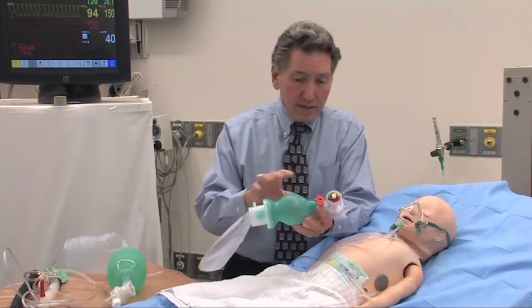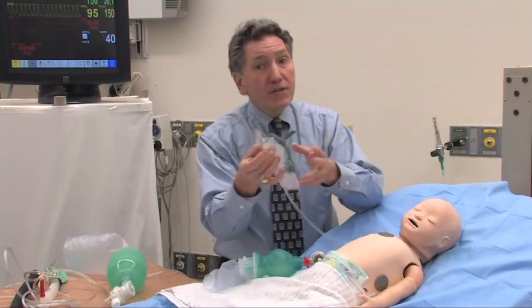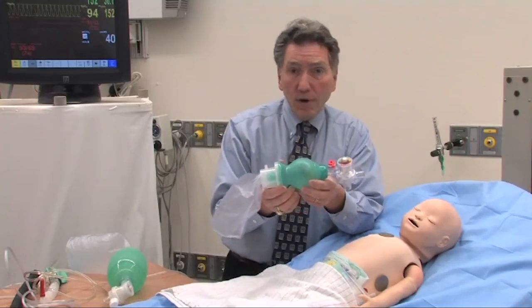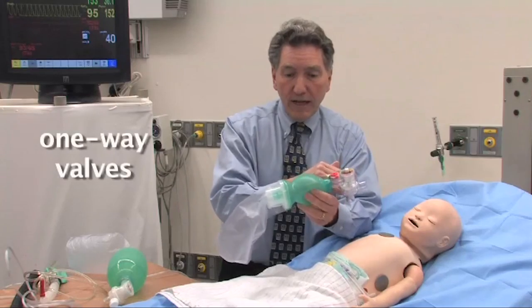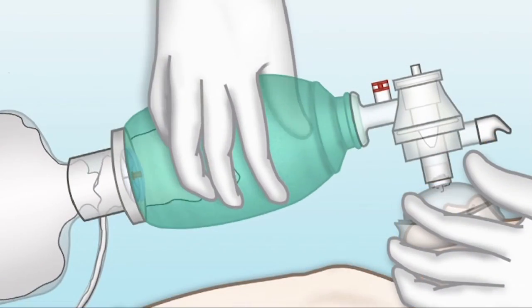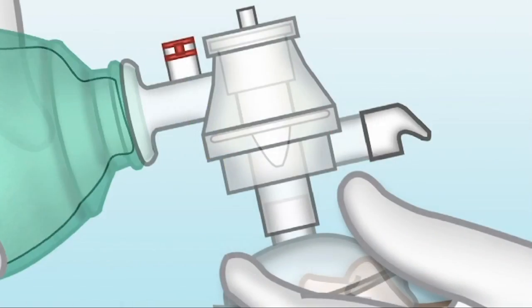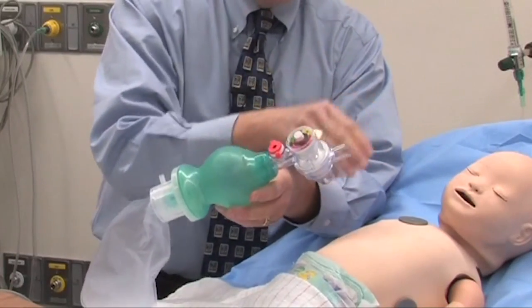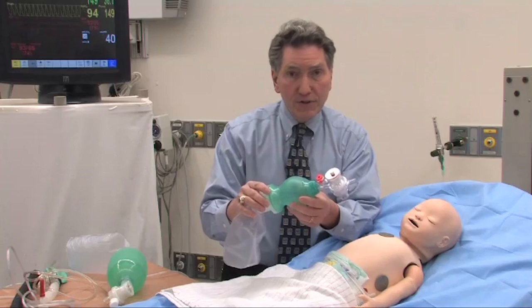How does it work? It's a relatively straightforward design, very similar to the non-rebreather mask in that it has valves and a reservoir bag. It's the quality of the rubber or plastic that makes it self-inflate. There are one-way valves: when I let go, this valve opens and gas comes into the bag; when I squeeze, this valve closes, this valve opens and the gas goes to the baby; when the baby breathes out, it goes into the room. So it's one-way flow — bag to child, child to room — with no CO2 rebreathing. A major advantage is that you can ventilate without any oxygen source attached.